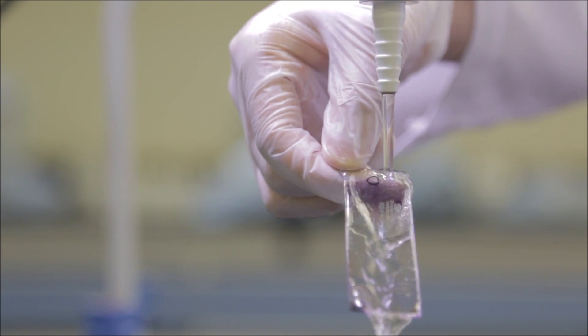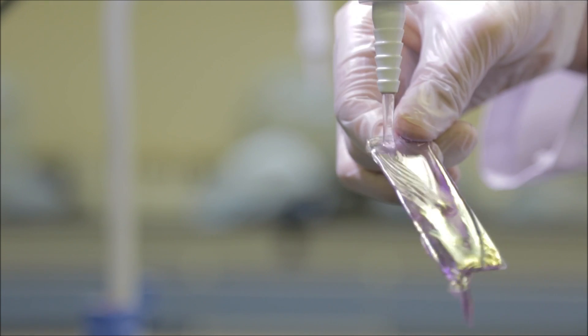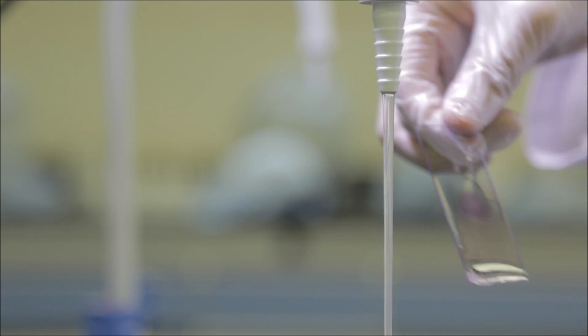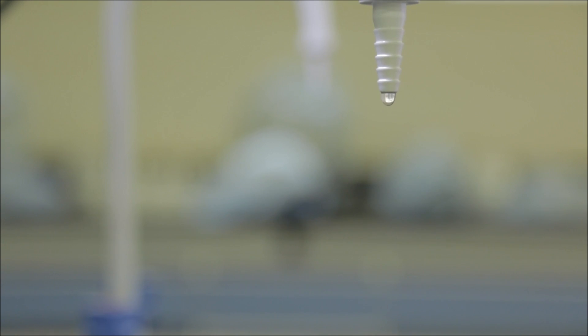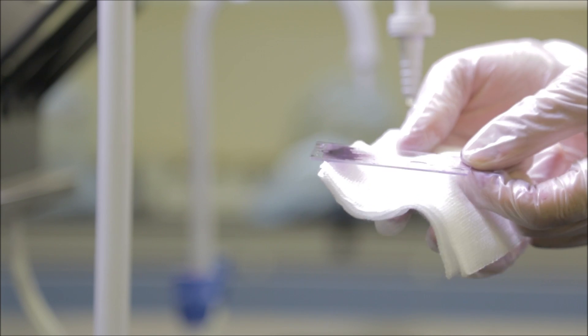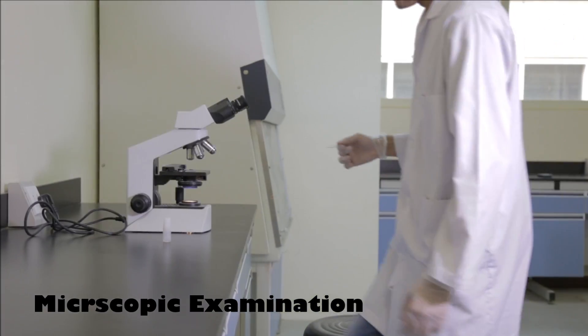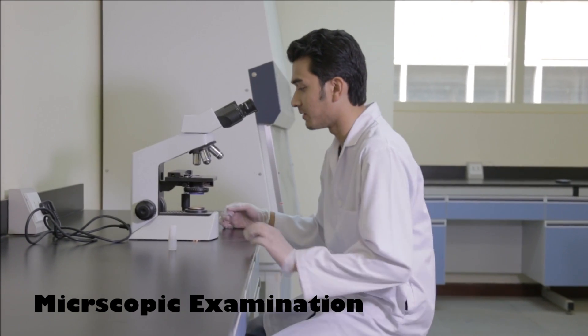Rinse the slide in water and air dry. Examine the slide under microscope.